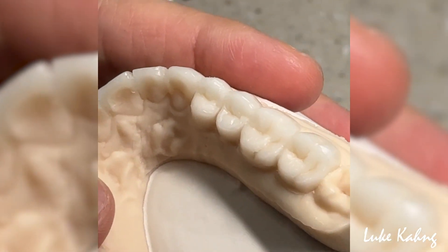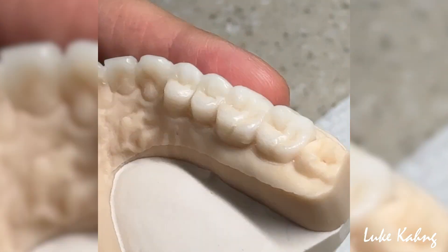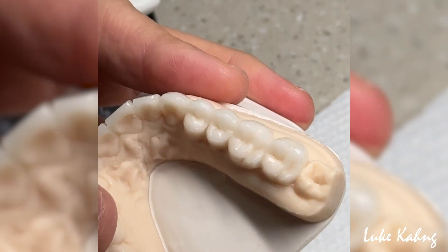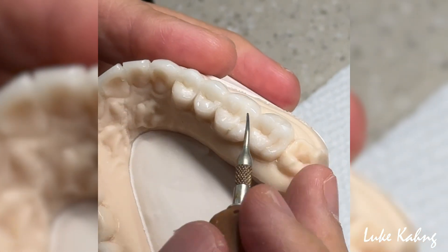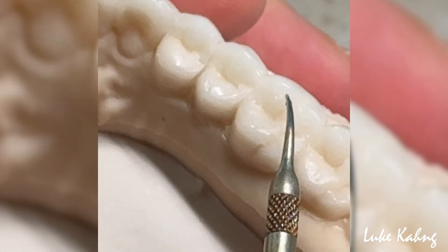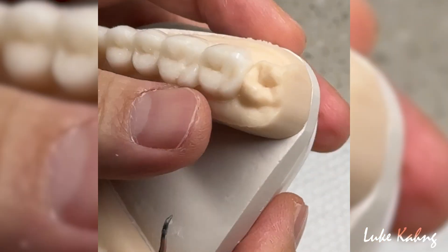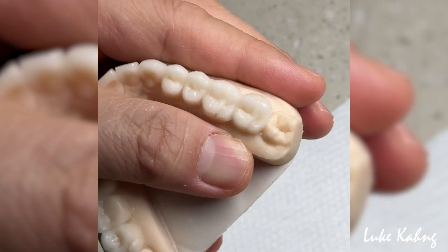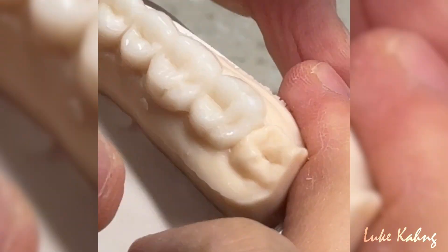Move to the molar. I want a good cusp here because I don't want fracture. From the gingival margin, this is an oblique ridge here, and then you make another secondary groove. I want another nice cusp. I can modify a little bit after this. Move to here — we're going to extract this. Make a more rectangular shape — move it, don't make it really deep. Just fill in like the oblique ridge.